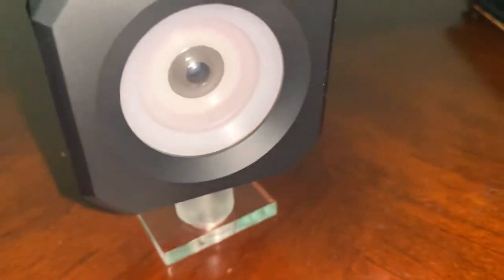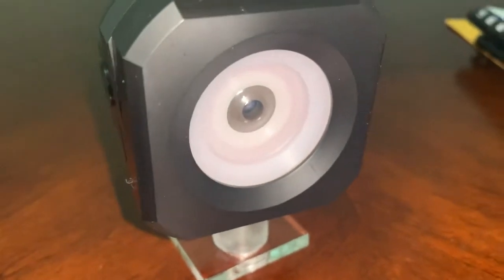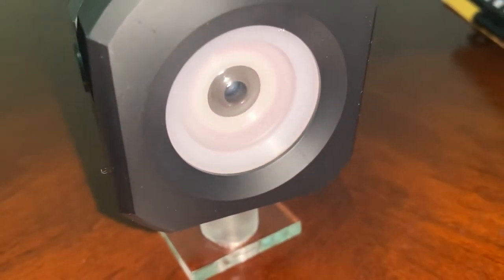I also use this for demonstrating how to check angles. When the pressure is lower in the eye model, the chamber is a little shallower. So that's another great use for this.